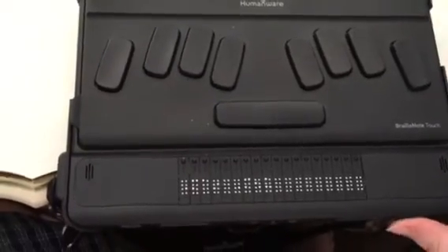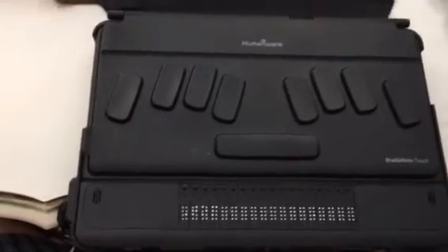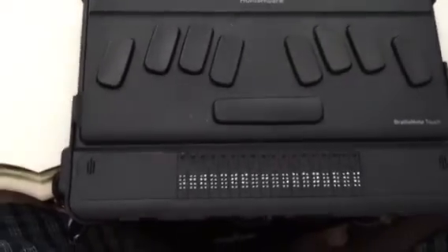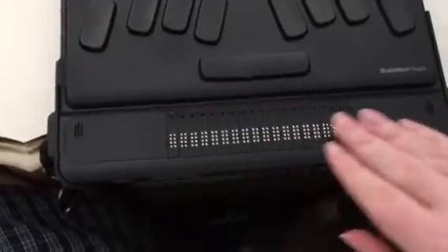Some emails coming in there. It should be noted that I'm using Vocalizer text-to-speech on here at the moment, so that's why it sounds different. To lock it again just hit the button once — screen off — and the Braille display goes blank.